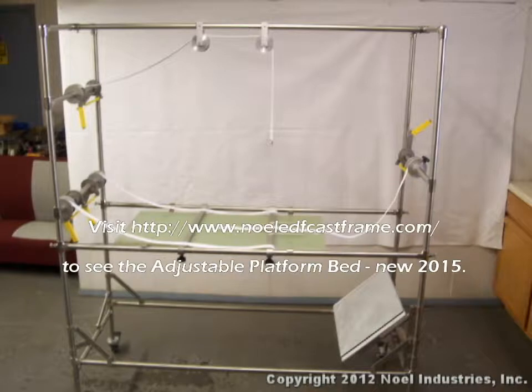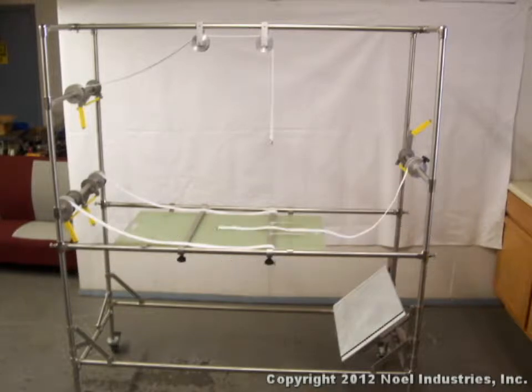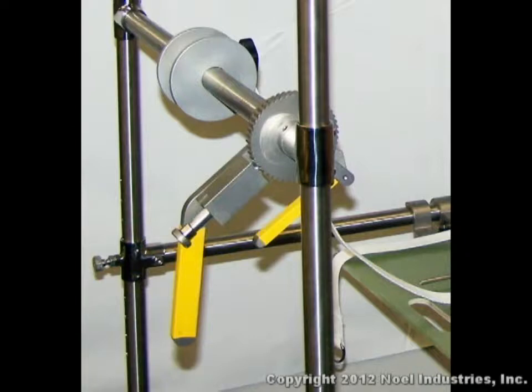The ratchets on the NOEL EDF casting frame provide the surgeons and operating staff the ability to properly apply tension for the EDF casting process.